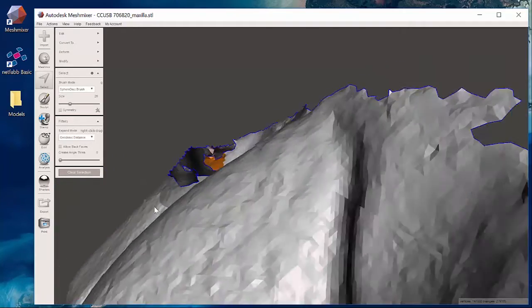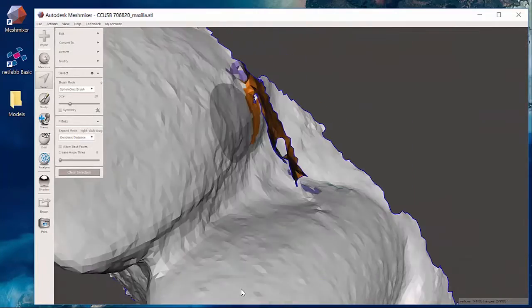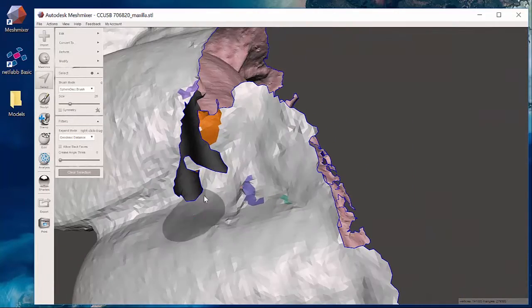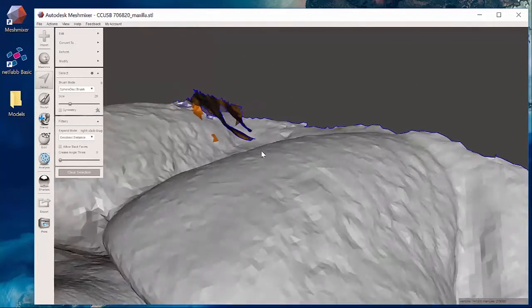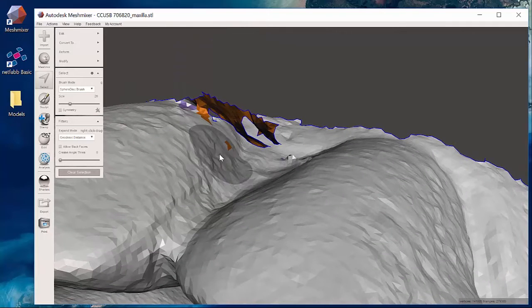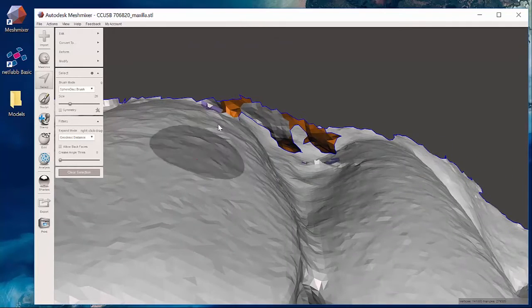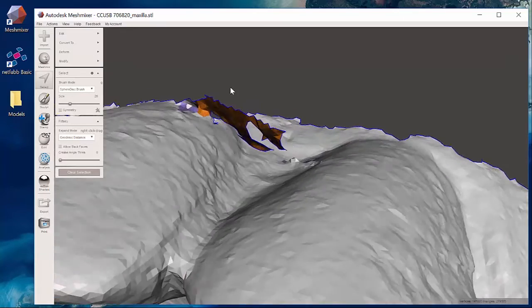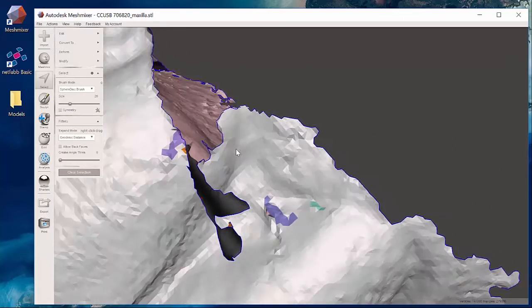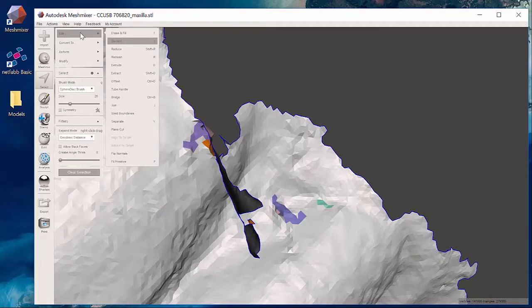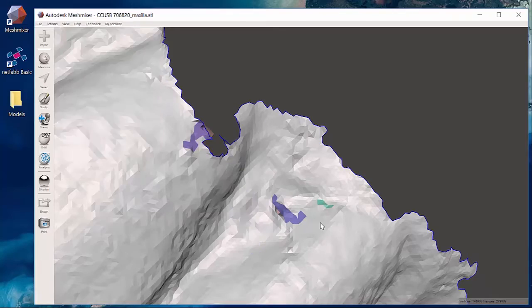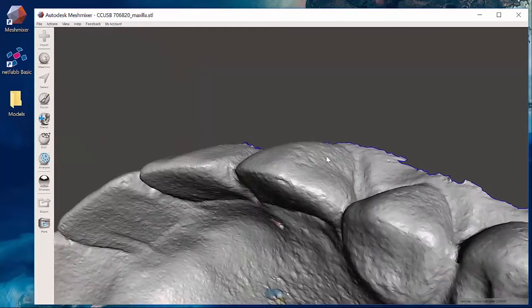What I can see here is that if I approach it from just the right three-dimensional view, if I hit control and left click I'm going to deselect all of this good part of the tooth I want to keep and then only select that little part that I want to delete. Edit discard and it very easily clears that away.